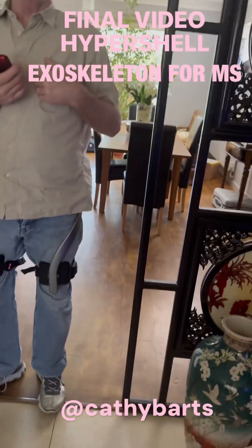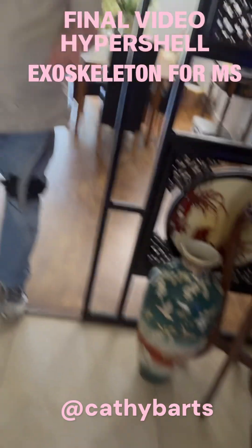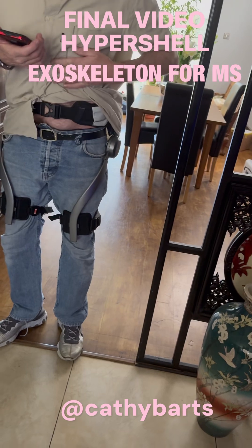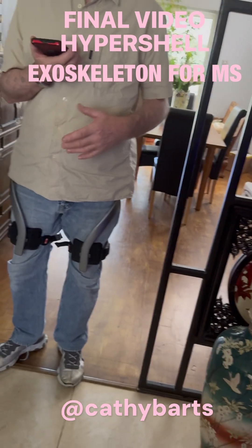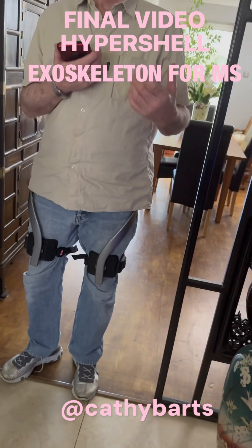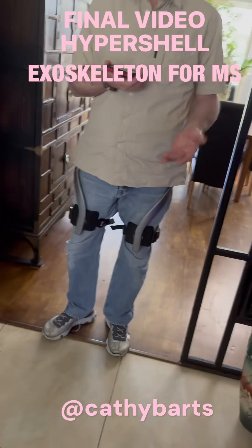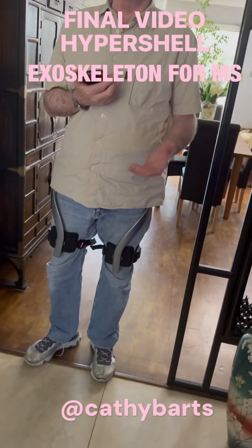The other thing is it gets extremely hot in warm weather — the padding around on the bracelet. So I take that off and let it air. All I can say is do your research and talk to some people. I've basically jumped the gun — I thought I'd jumped the gun.